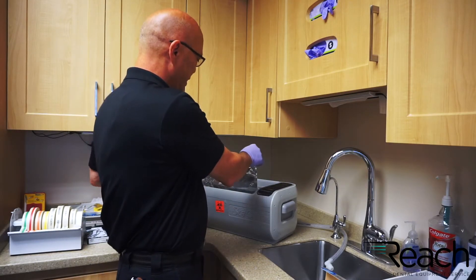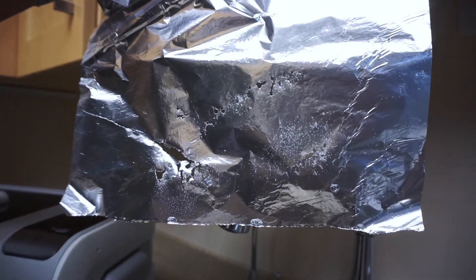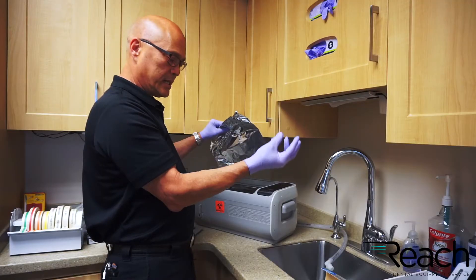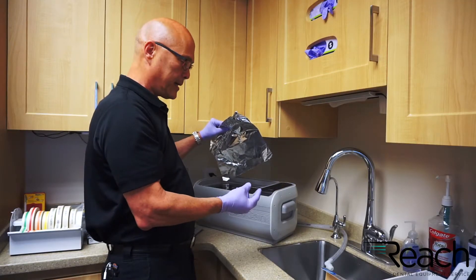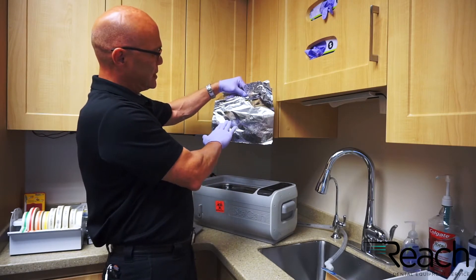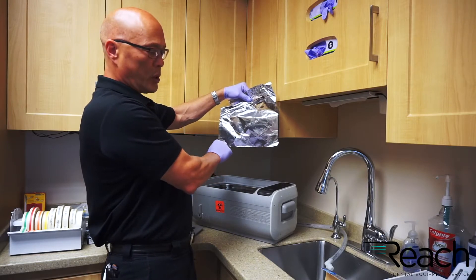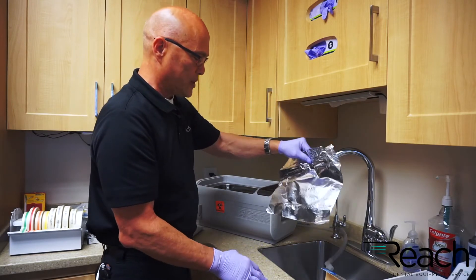This particular ultrasonic I already ran it and it'll create holes in the foil. What creates the ultrasonic waves are the mechanisms glued to the bottom of the tank. You want to make sure there's either a stippling effect in the aluminum foil or actual holes in it — that'll tell you if it's operating correctly.